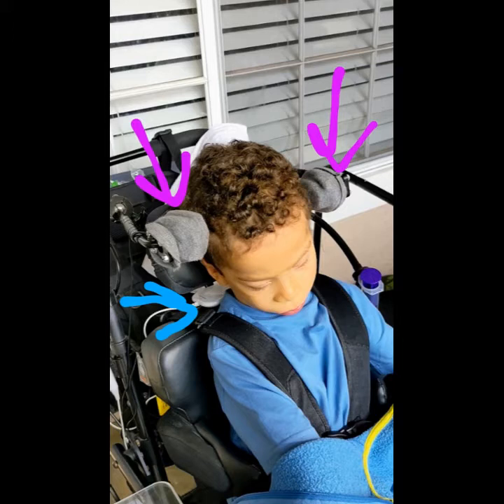Tyler has cerebral palsy, and he also has a vision impairment that includes cortical visual impairment and nystagmus. The severity of Tyler's cerebral palsy impacts his motor skills in a way that prevents him from reaching out and touching the screen of his communication device without significant difficulty. His vision impairment prevents him from being able to see small pictures clearly. Because of these two things, Tyler uses a method to control his communication device called two-switch step scanning with auditory prompts. This method allows him to have access to a large enough vocabulary for him to communicate the many things on his mind.